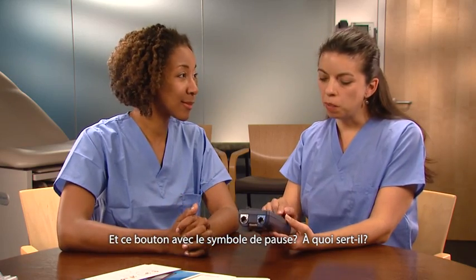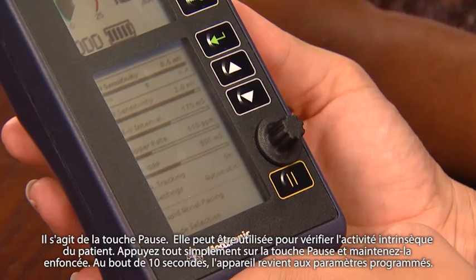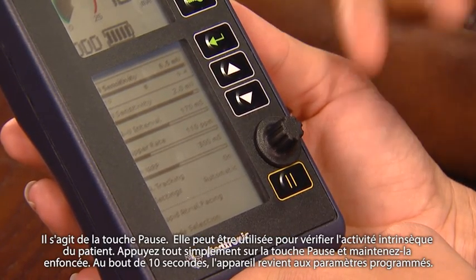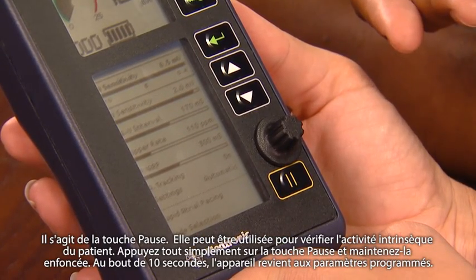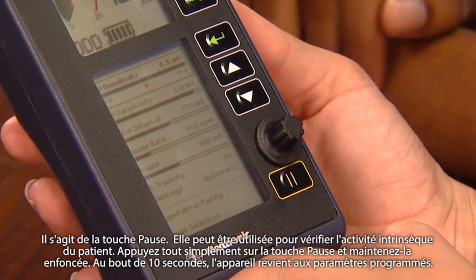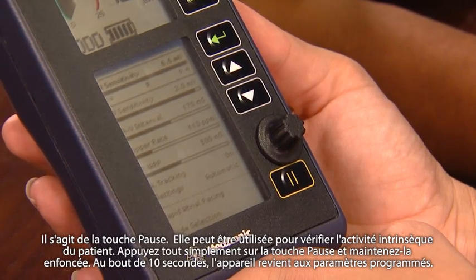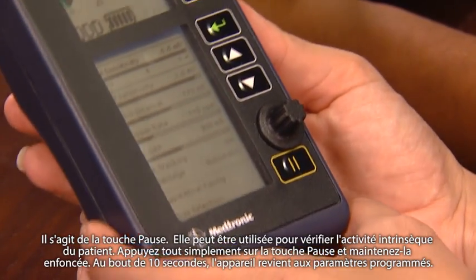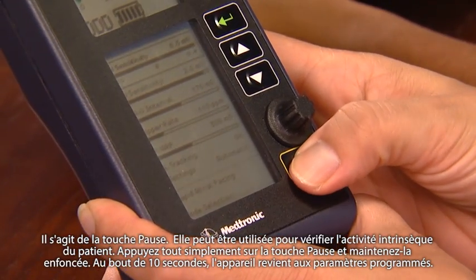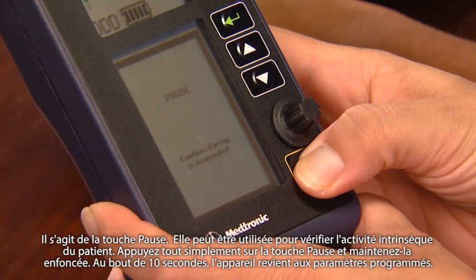What about this button with the pause symbol — what does that do? This is the pause key. It may be used for checking the patient's intrinsic activity. Just press and continue to hold the pause key. After 10 seconds, the device will revert back to programmed settings.